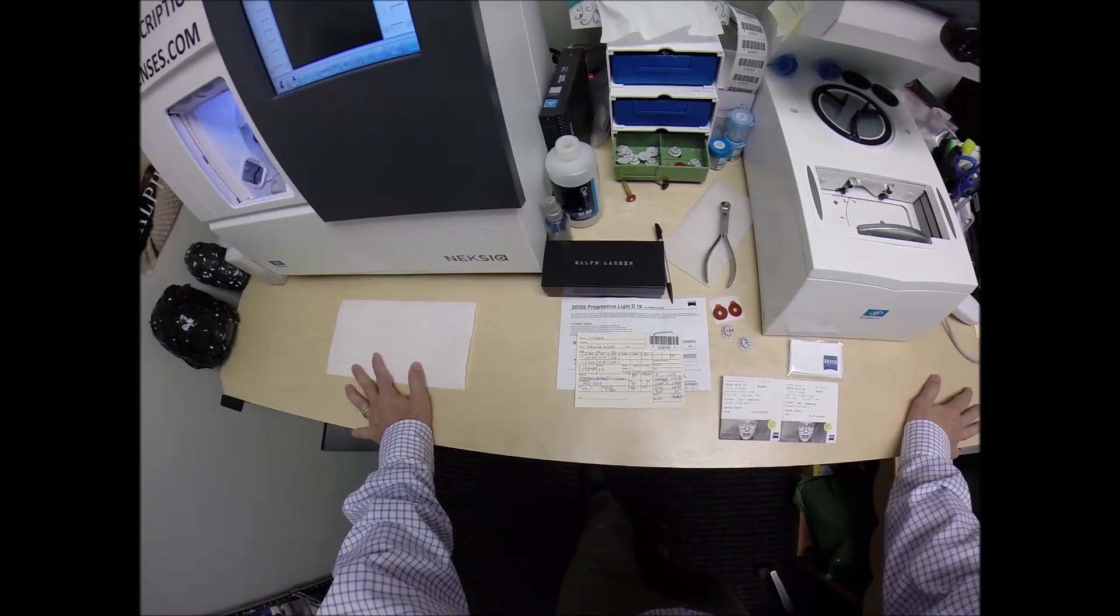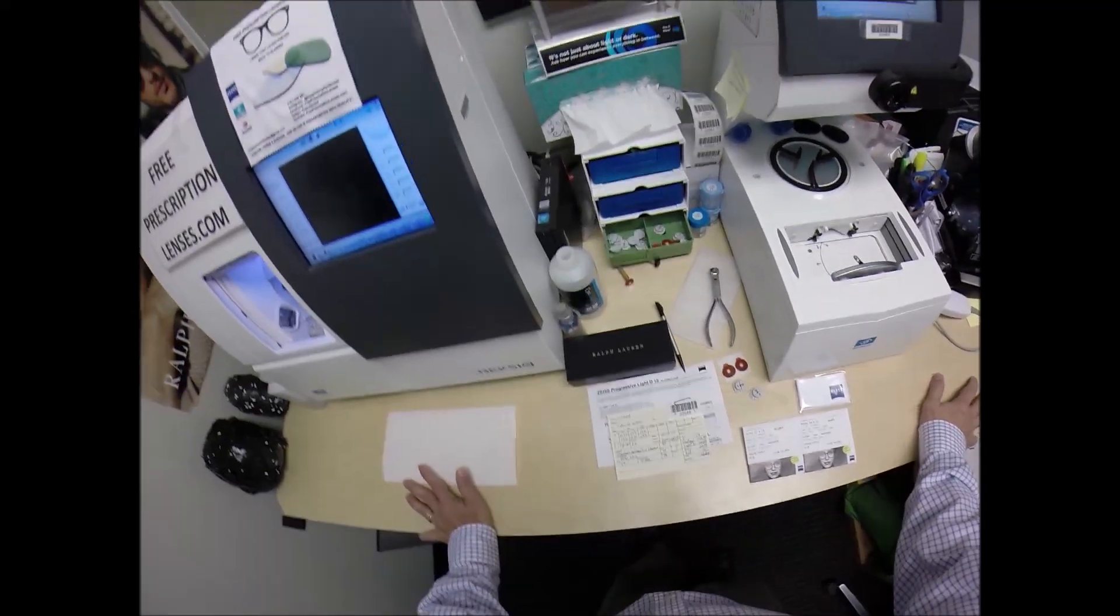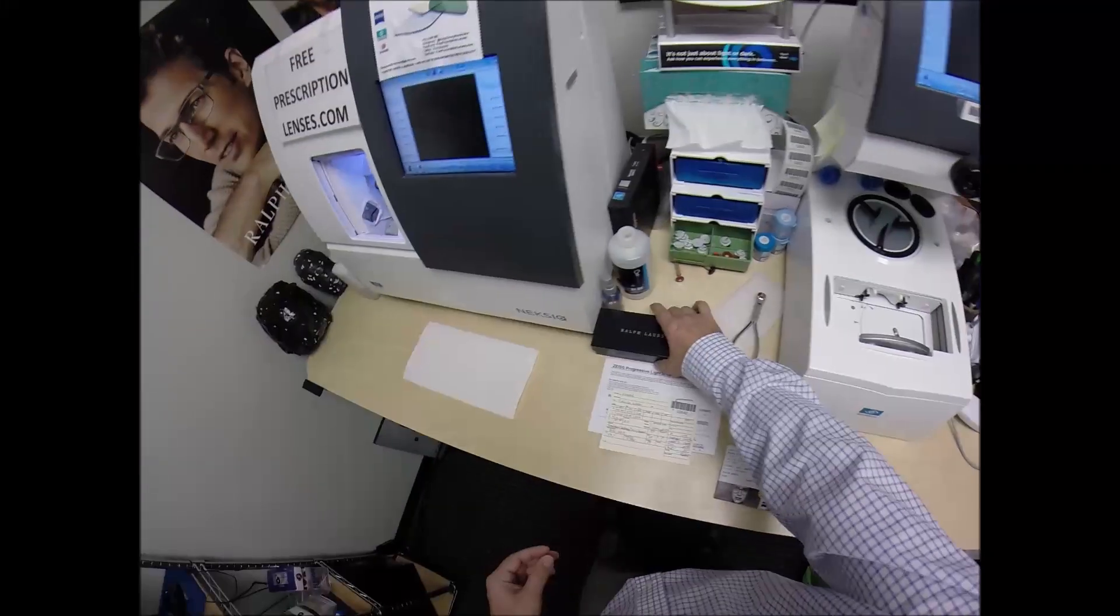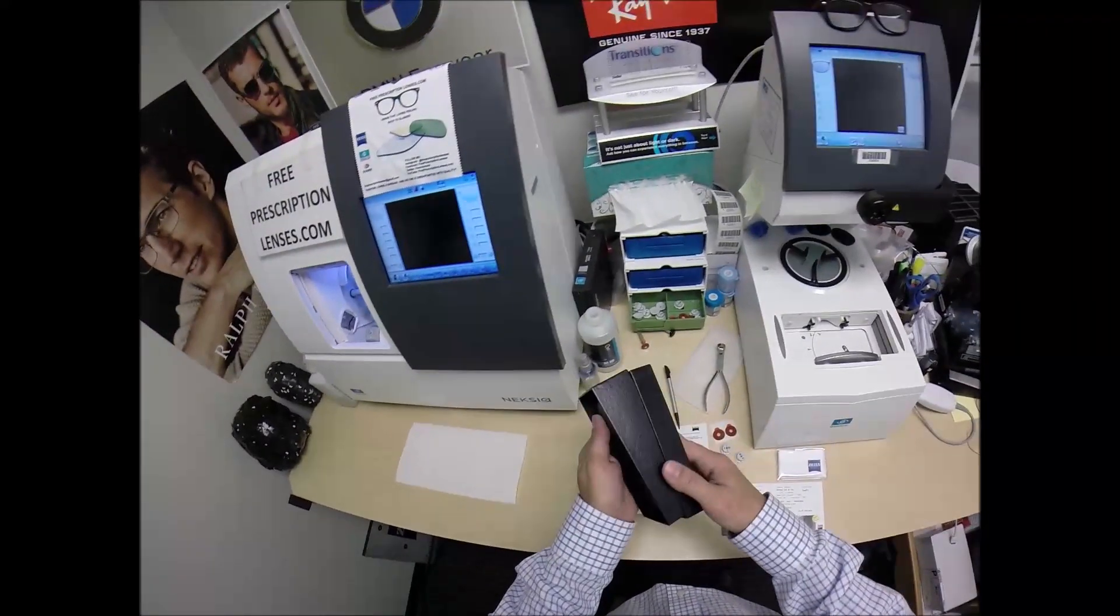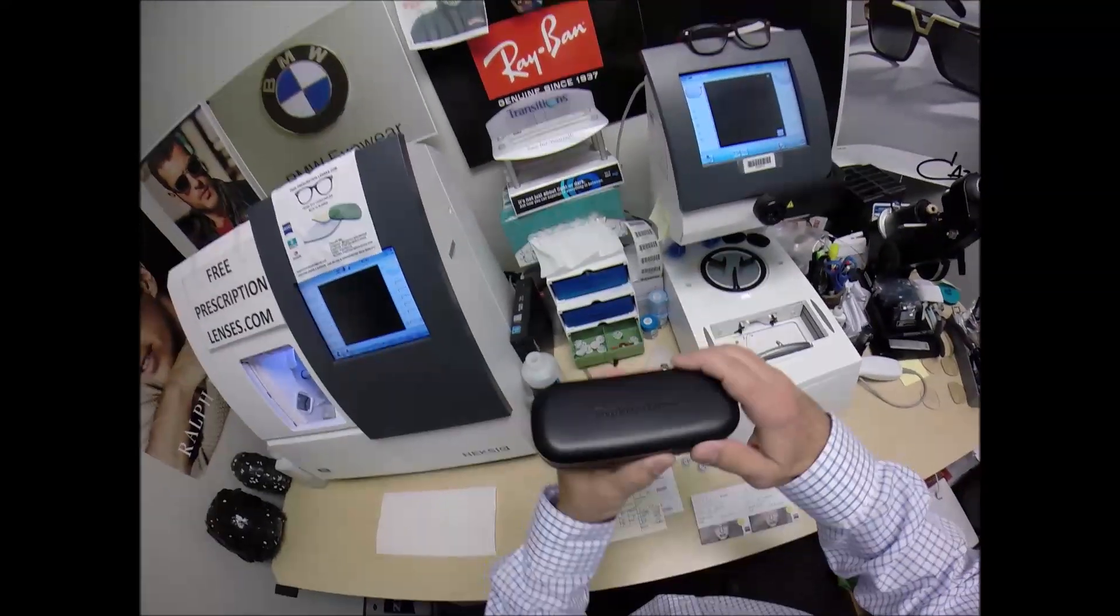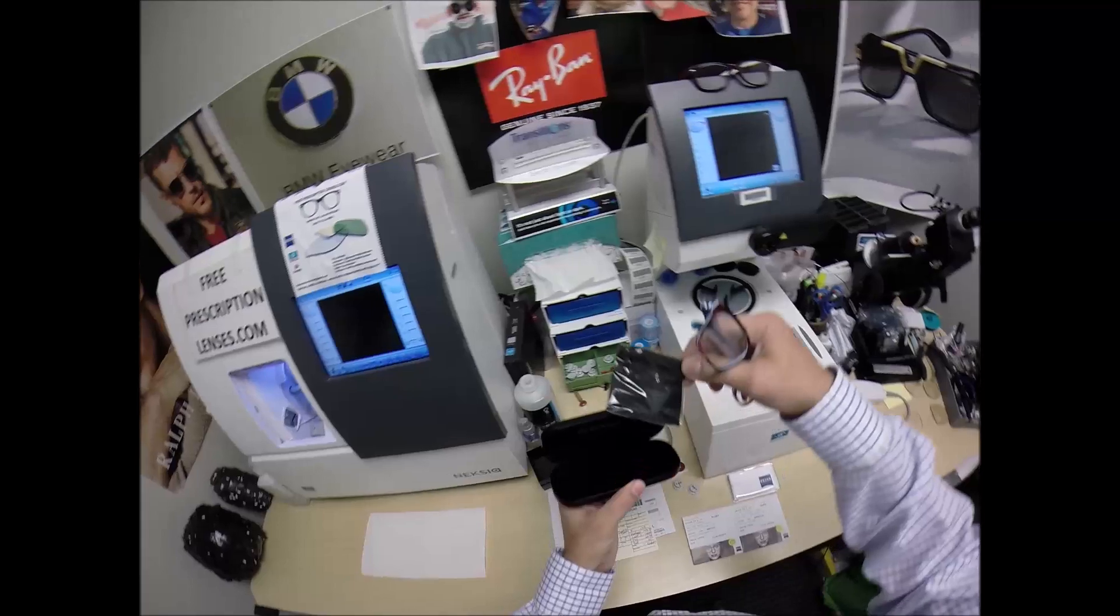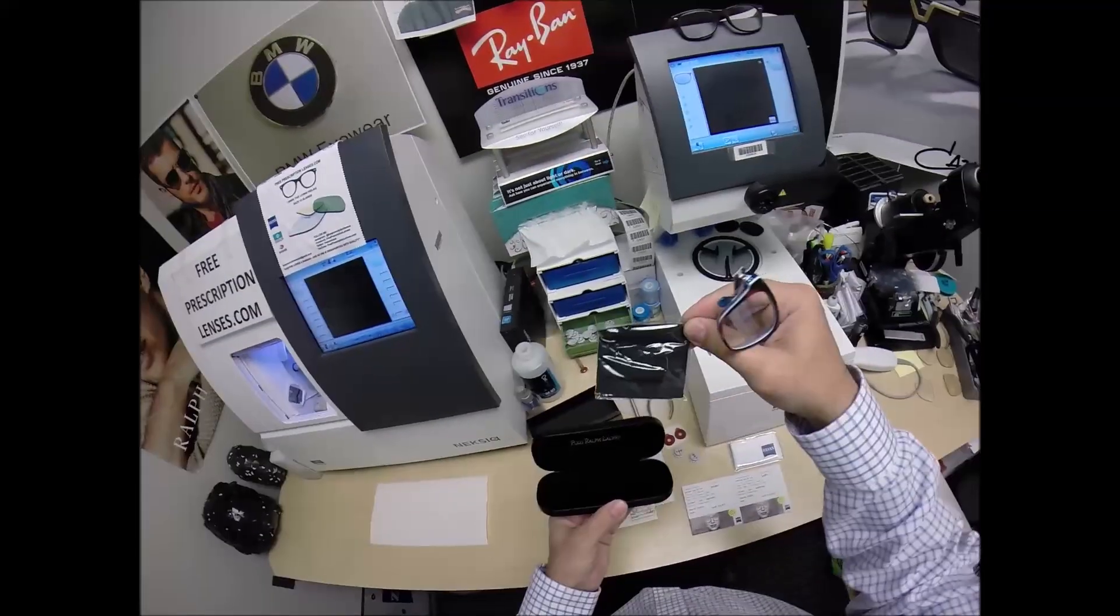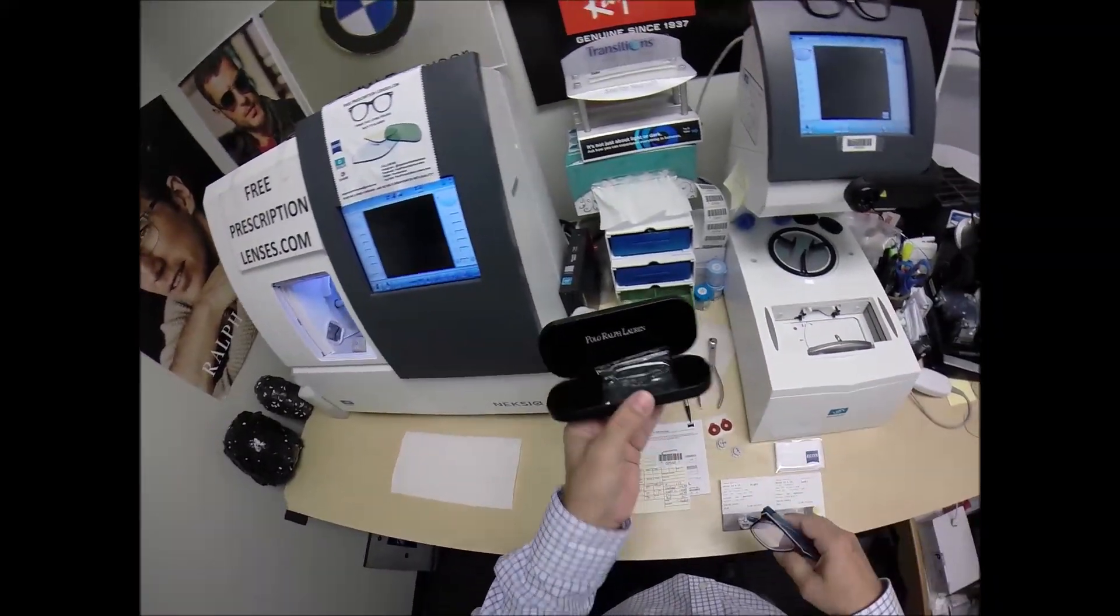This time with Transitions Vantage, DuraVision Chrome, and a light gray tint for your Ralph Lauren Polo. Let me take everything out of the original packaging. Your Polo Ralph Lauren. Of course it comes with actually one of the largest cleaning cloths that any of the designer frame companies give you.